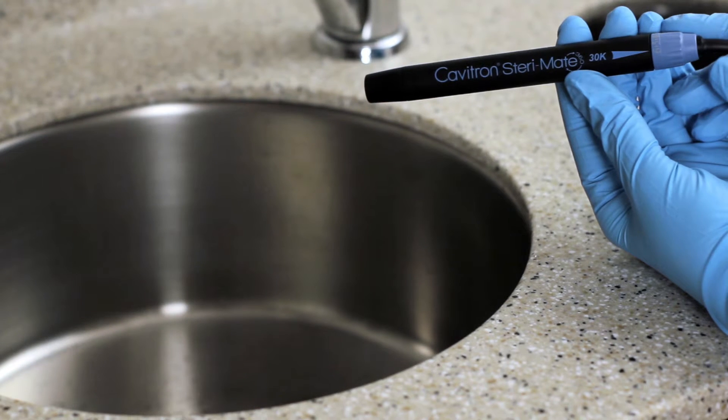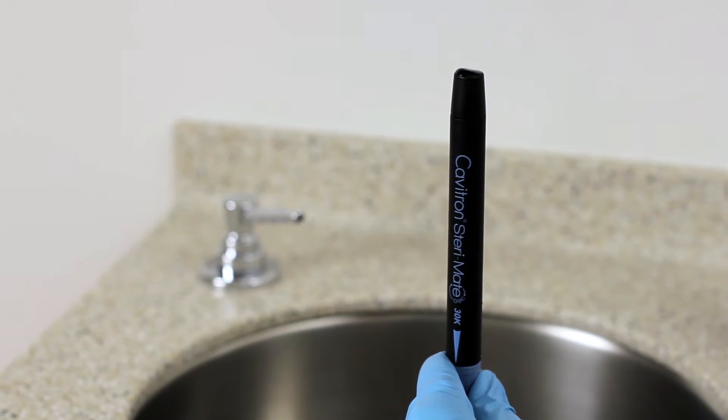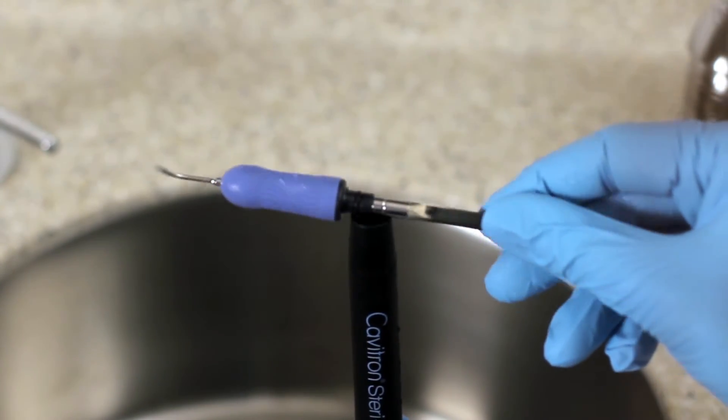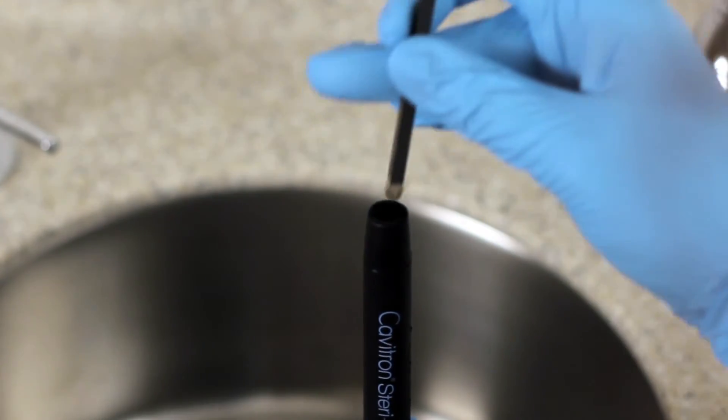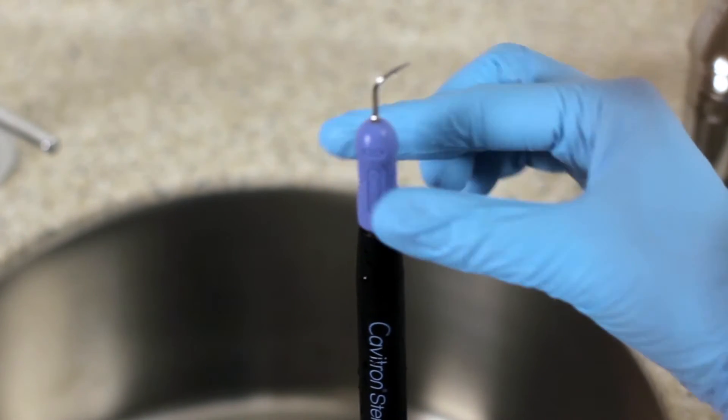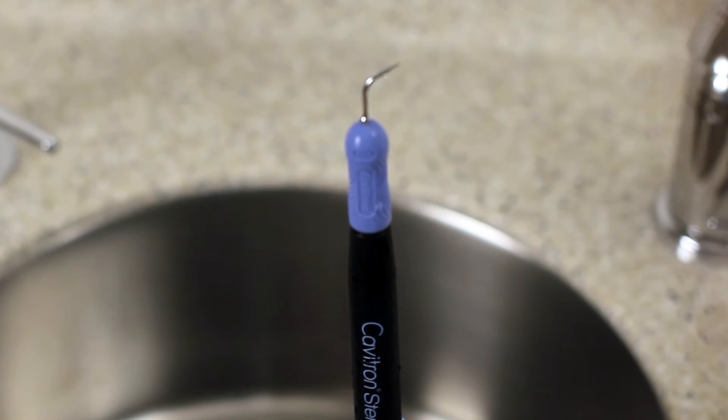Please note, the tap-on technology only operates when an insert is seated in the handpiece. Be sure to lubricate the O-ring before fully seating the insert and then push with a gentle twisting motion. Do not force it.